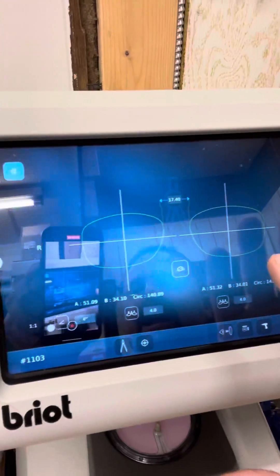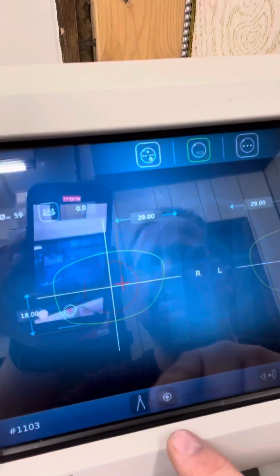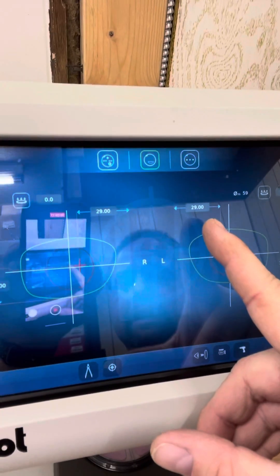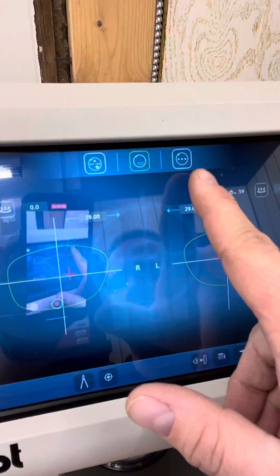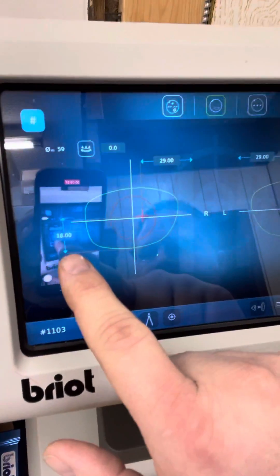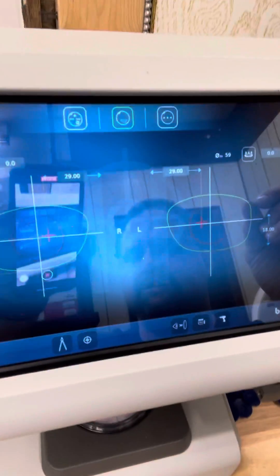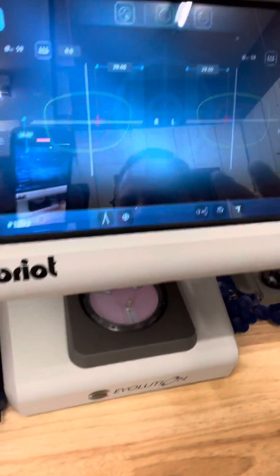It does that each eye independently, so it's even more accurate than systems that just trace one side and duplicate it. We hit this button here — this goes to our blocking screen, which automatically brings in the customer's near PD, because this is a bifocal. If it were a progressive or single vision, it would bring in their distance pupillary distance. It also brings in their seg height — all that is done automatically, which is one of the advantages of going through our server instead of a closed system.